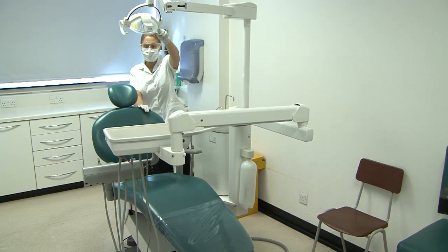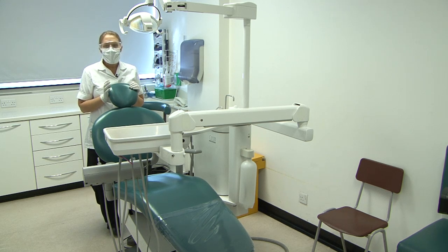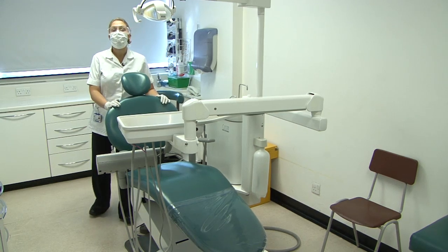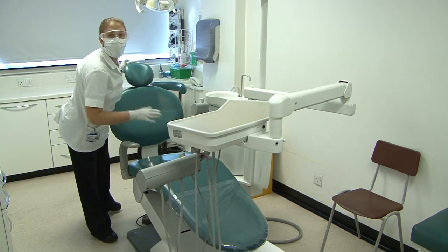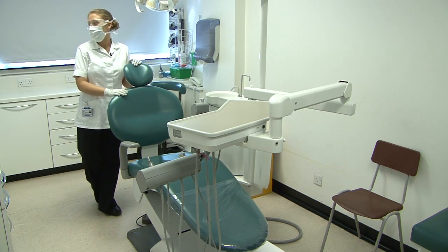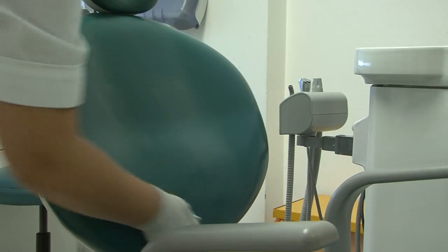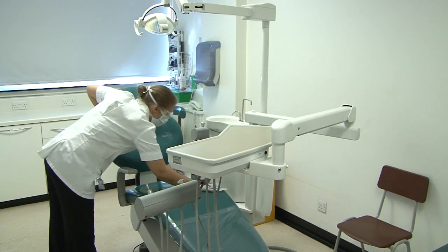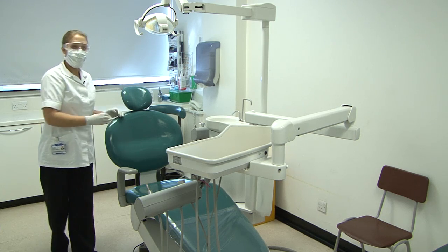I move on to the soft surfaces. We do not use azo wipes on our chairs because they are made of leather — the azo wipes dry out the leather which causes it to crack, which gives a nice host environment for microorganisms. So what we do with our chair is we wash it with a combination of water and Hibiscrub, and literally just wipe it down. You can allow this to dry naturally or you can just wipe it down with a paper towel.